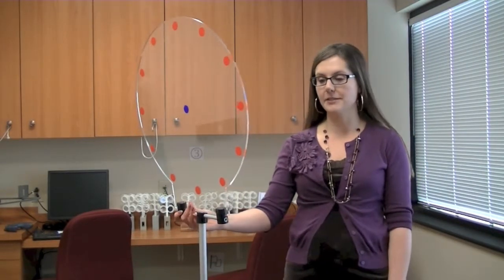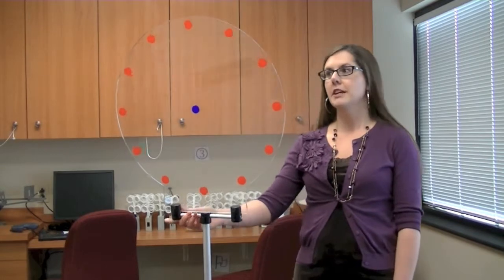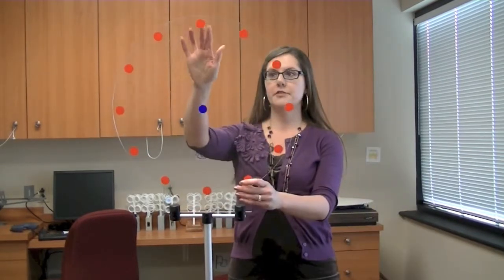Hi, I'm Dr. Julie Steinauer. Today I'd like to talk to you about this piece of equipment next to me. It's called a space fixator. This was a really fun activity that we can utilize in vision therapy. As you look at it, you can see there's a bunch of dots on it.